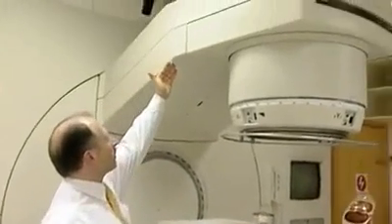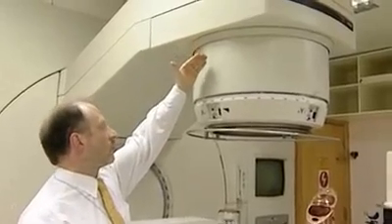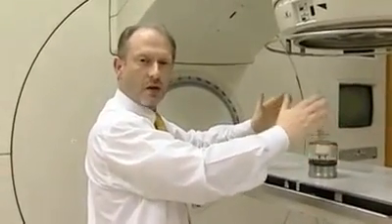They come down here, and by magnets the electron beam is bent through 90 degrees, hits a target, and produces, by definition, the x-rays.